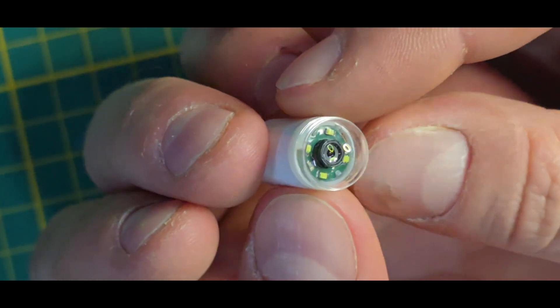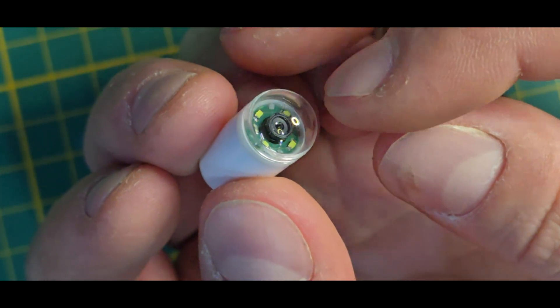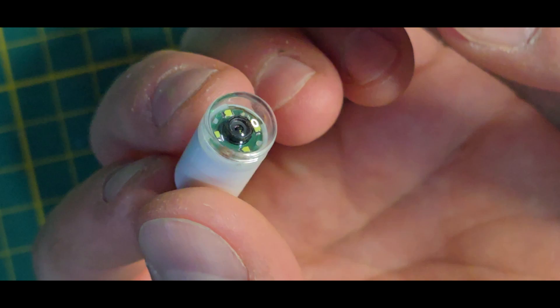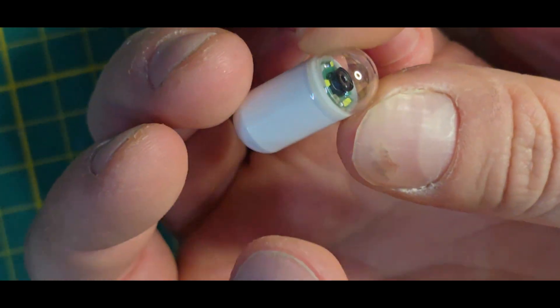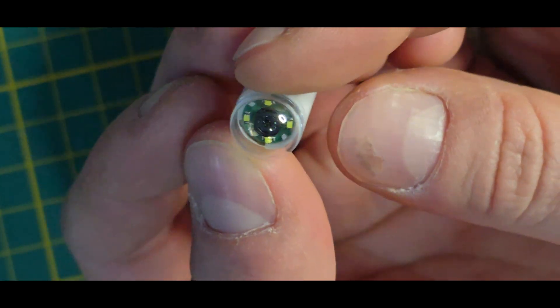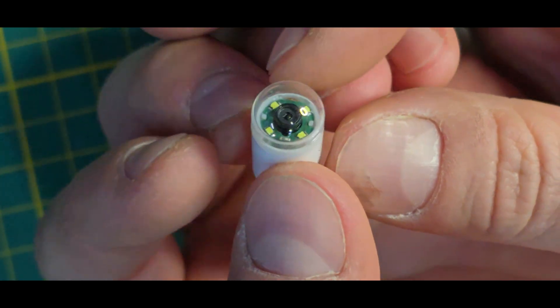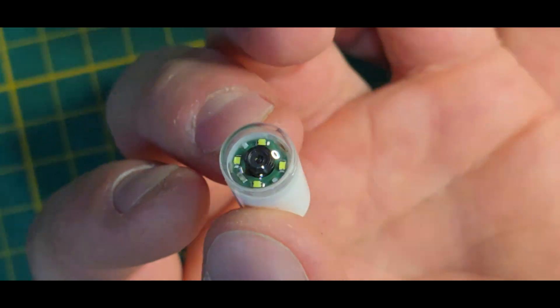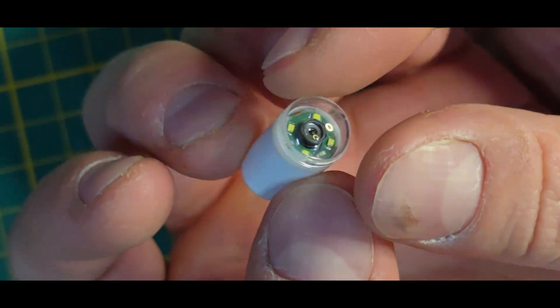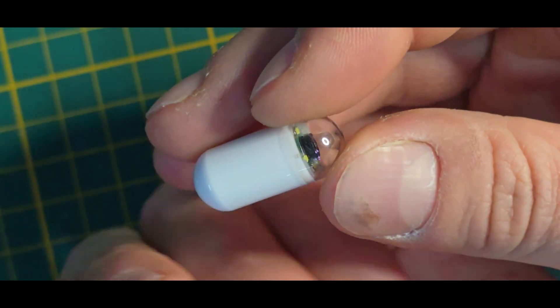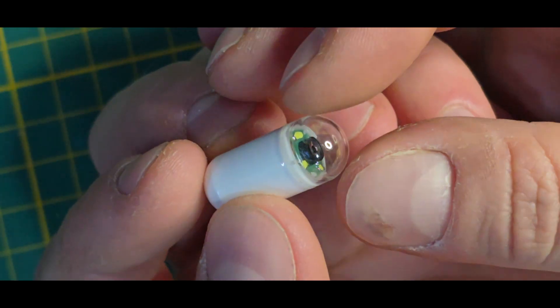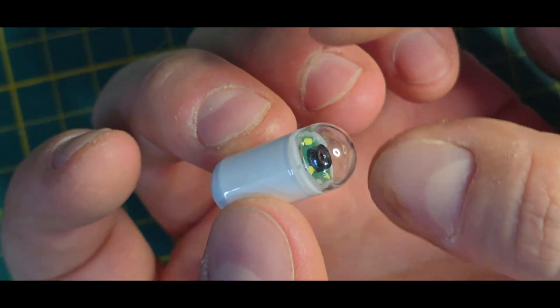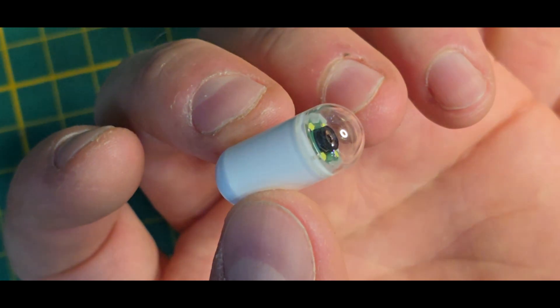As I don't know how this will work out and if it's even possible to get it out without destroying it, we want to take a look inside of course and maybe even power it on via external power and see if we can see anything. If we can see like a microcontroller with the firmware, if we can take a look at the firmware, or if it is quite analog inside. I'm not sure.